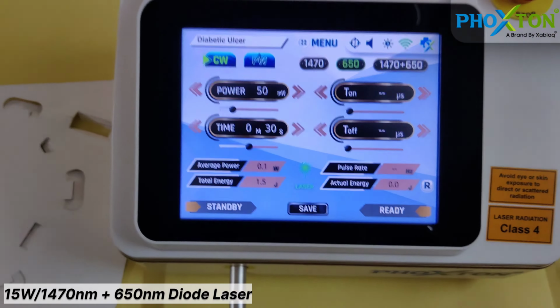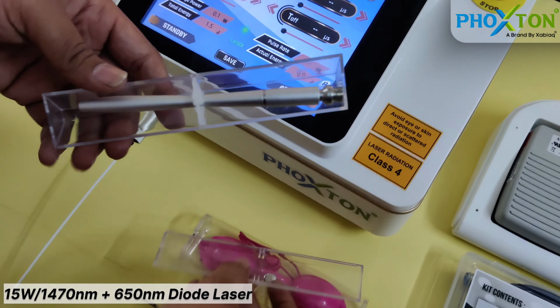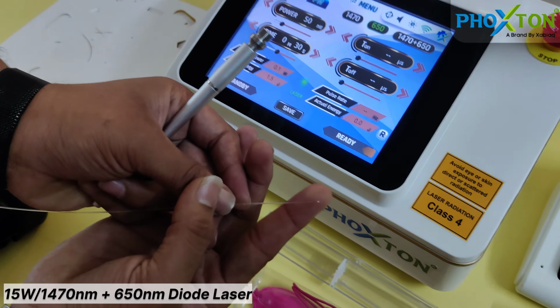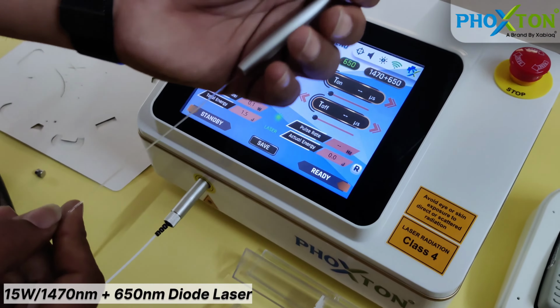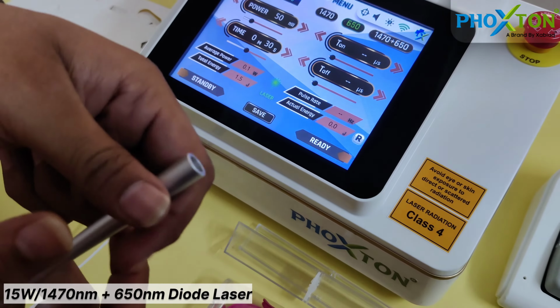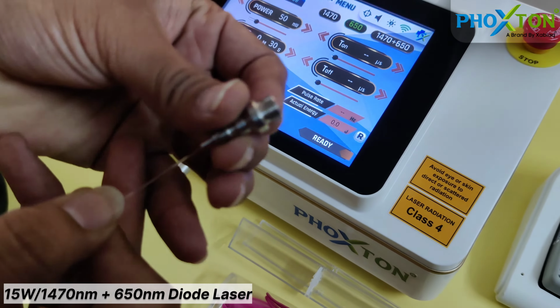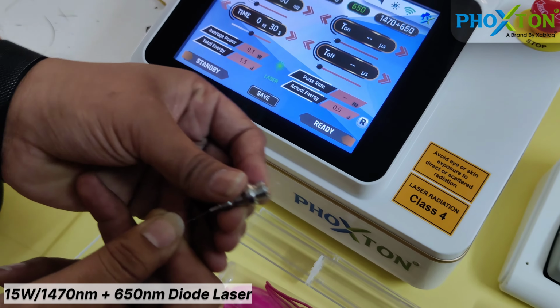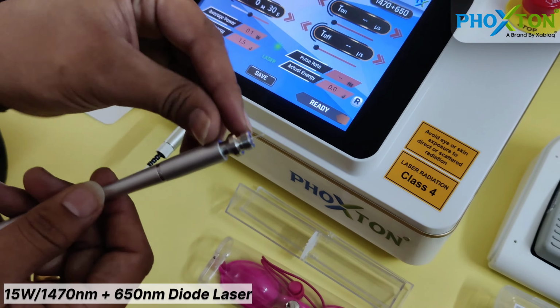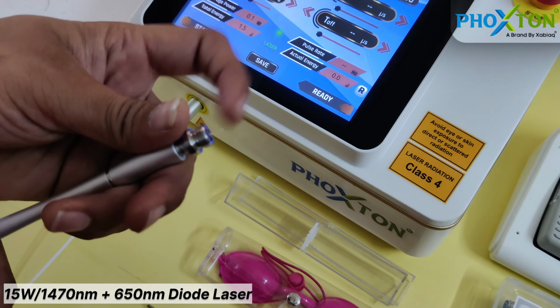Now there is a different handpiece for diabetic ulcer. This type of handpiece is there. We will take it from the box. Bare fiber, we will be inserting the bare fiber from the back side of this handpiece. Now we can see if we have to remove this. Now insert this bare fiber into the handpiece. Now just tighten the handpiece. Just keep around 1 centimeter or 0.5 centimeter of fiber out of this cannula.